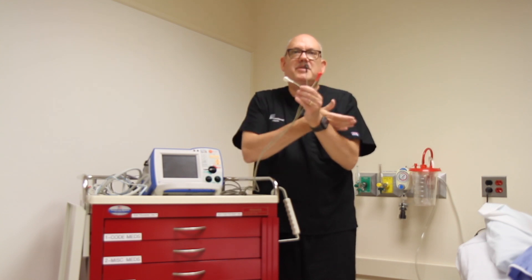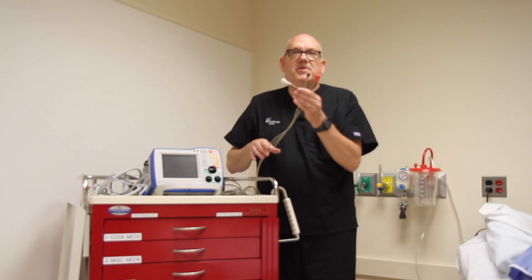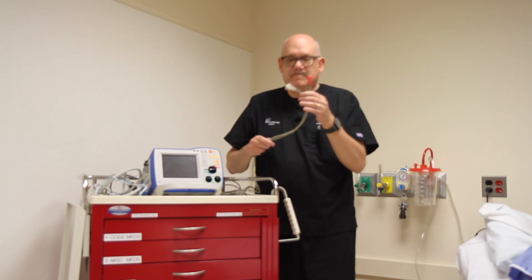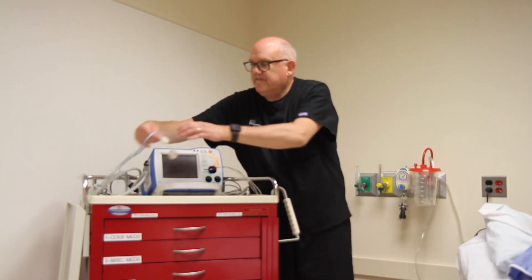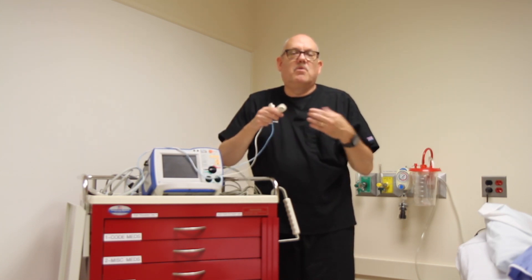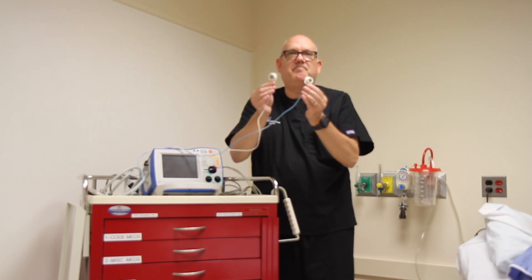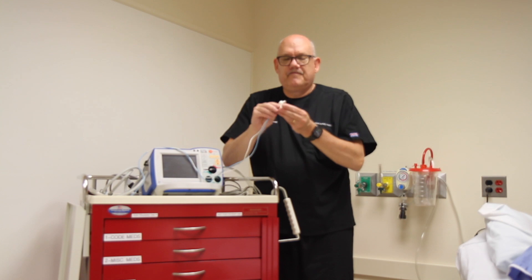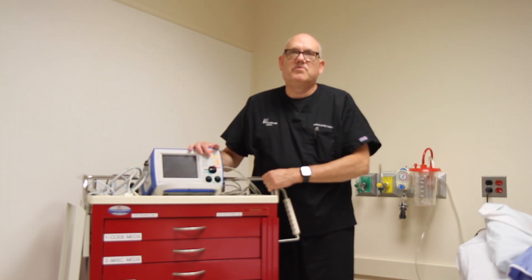Next up we have limb leads. This particular setup has three limb leads which attach to the patient's chest wall in the normal fashion. Some limb lead sets will have leads for four or five connections on the patient's skin. Last but not least, we have cables for hands-free pads. In the hospital, these pads — white square or rectangular pads — attach to the patient's chest wall. Here in the sim lab we have adapter pins that go onto corresponding nubs on the patient's chest.